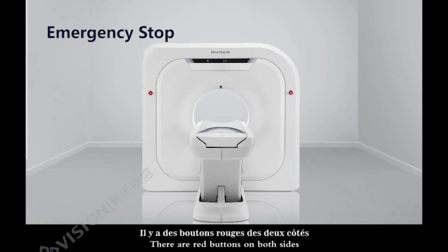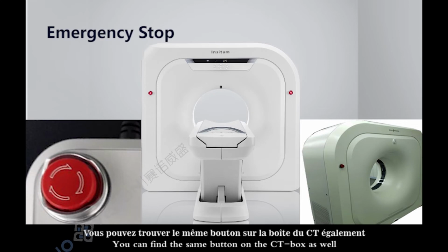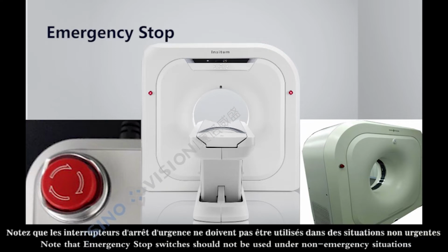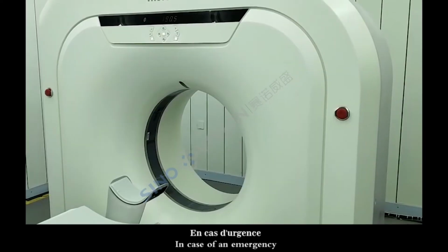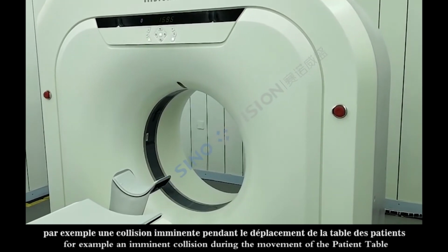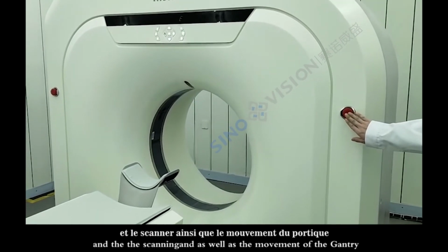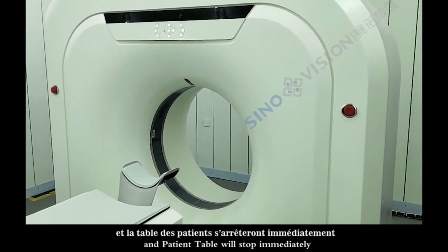There are red buttons on both sides, and two at the rear side of the gantry. You can find the same button on the CT box as well. These are emergency stop switches. Note that emergency stop switches should not be used under non-emergency situations. In case of an emergency, for example an imminent collision during the movement of the patient table, press the emergency stop switch and the scanning as well as the movement of the gantry and patient table will stop immediately.